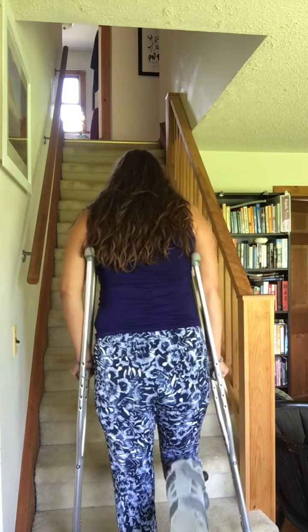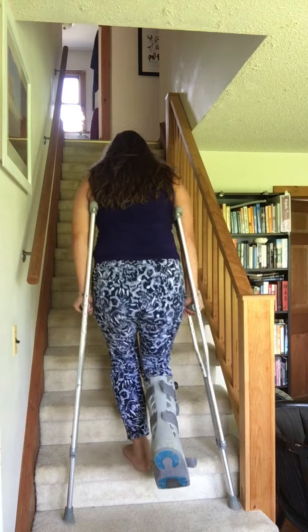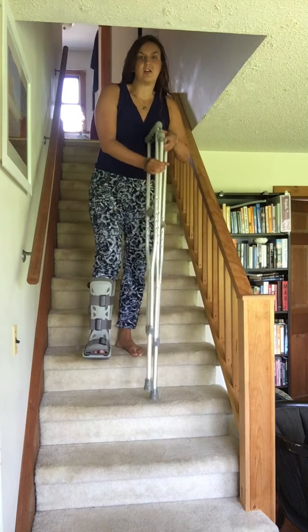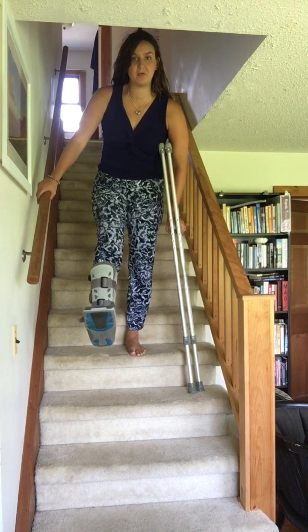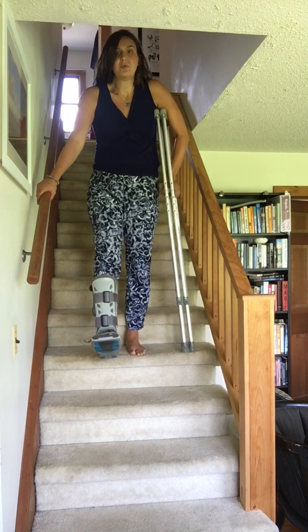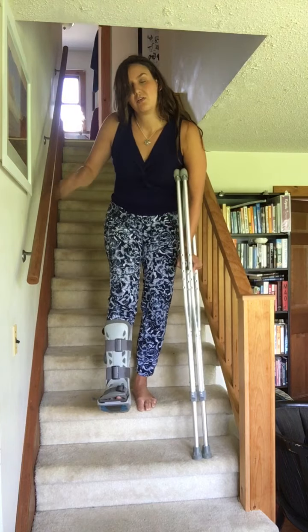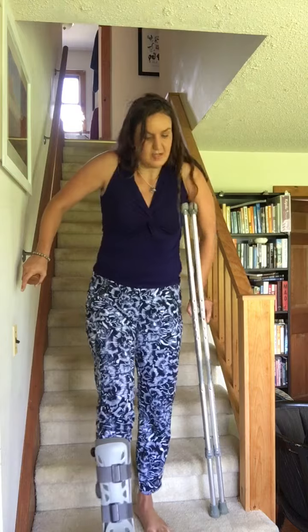If there's a handrail, I actually find that's a little better. Coming up: the bad foot is behind you, crutches on the same level, bring the good foot up, crutches come up — good foot up, crutches up. If the handrail is sturdy, take both crutches in one hand and hold the handrail with the other. The bad foot stays forward and up. Bring the crutches down to a level below you, hand on the handrail, both at the same level, then come down with the foot — crutches below you, holding the handrail, lowering down. Crutches go down first, then move your hand on the handrail further down, then come down. Never, never try to lower yourself when your crutches are at the same level as your body — you will fall forward.